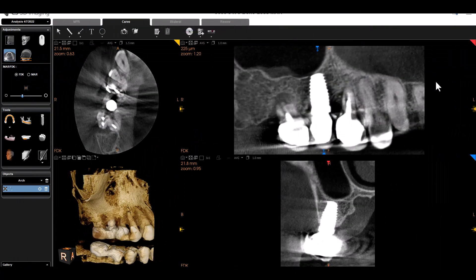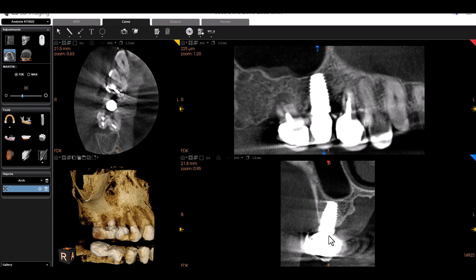This first case is a very typical example of what you would see on a regular basis. We see an implant, a metal post — you might even have two implants adjacent to each other — and we're seeing all the reconstruction artifacts. We're seeing the beam hardening artifacts, which is basically this black void. You really just don't know what's lurking behind it; it is masking any actual clinical information to help you diagnose accurately. We also see the reconstruction artifacts on the cross-sectional view and on the axial slice.